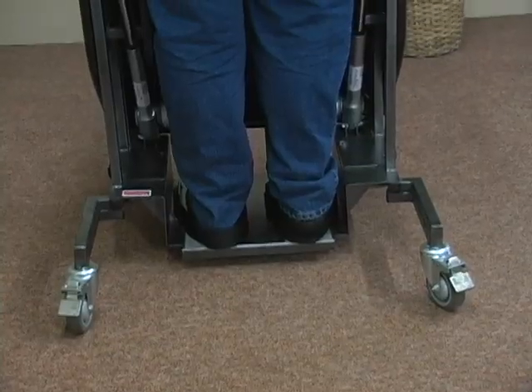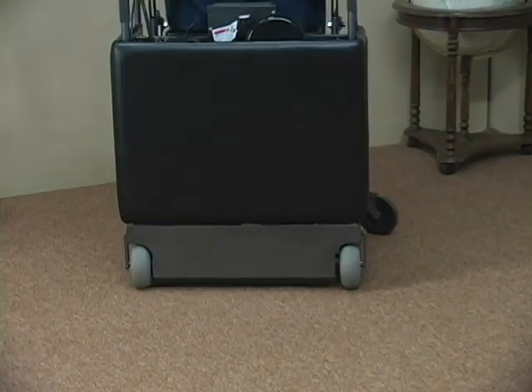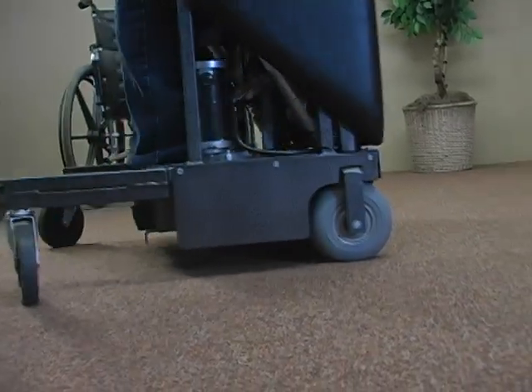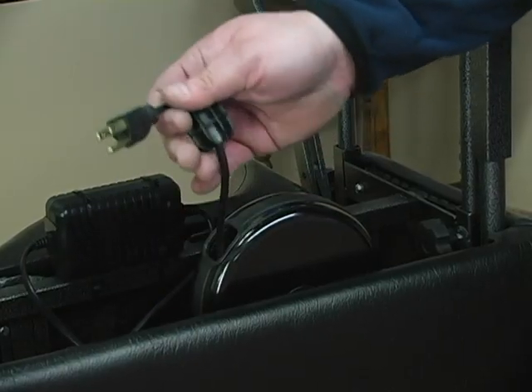With every Stand-Aid of Iowa system, these units are designed to fit through doorways so they may be used throughout the home or workplace. Made in the USA, each Stand-Aid is extremely durable and requires no assembly and limited maintenance.